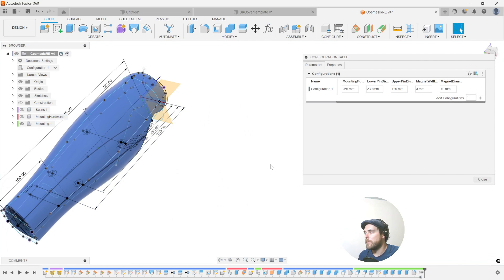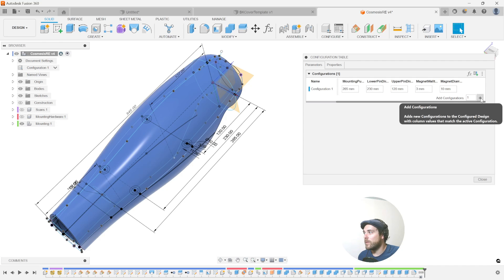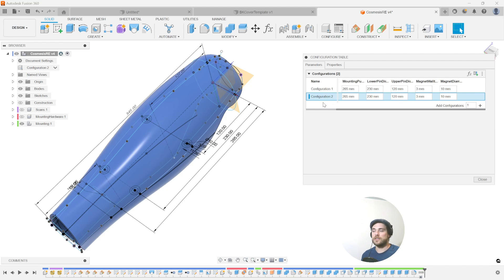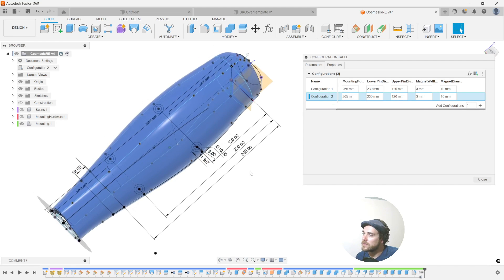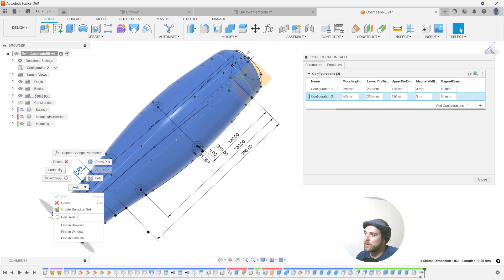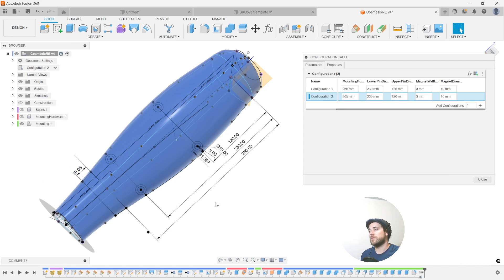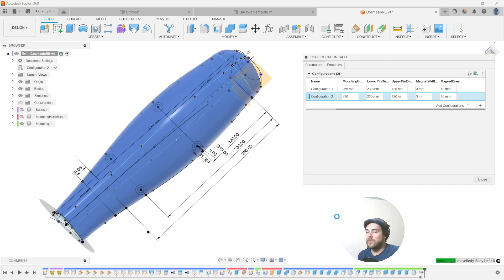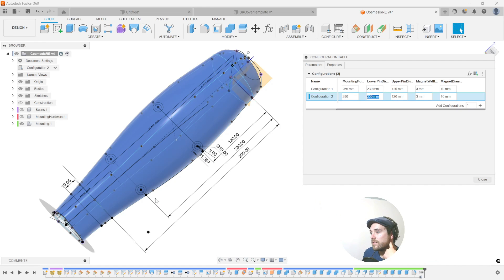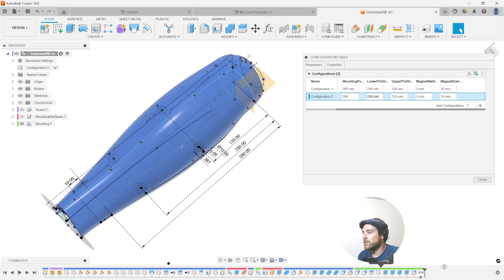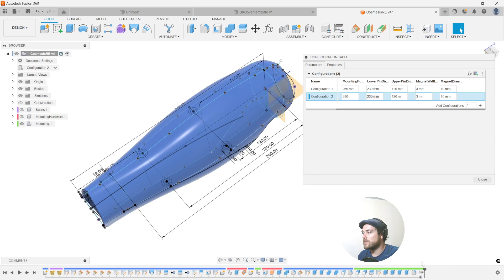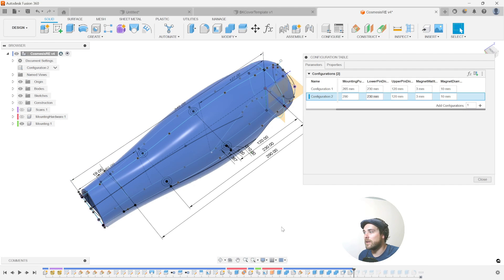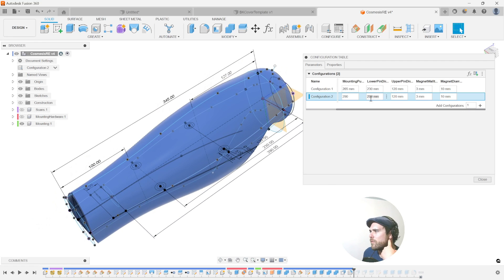So let's try some of these, and let's use some of these in our configurated window. So if I hit OK now, there is our first configuration. Let's go and add a new configuration and see if we can update some of these features for ourselves nice and easily. Which one is this? So this is a D31. So we might want to have that one too, just to determine the puck thickness as well. But let's give this a shot. So what happens if we make this a larger cover? So let's do like a 290. Now again, because I'm sitting at the very end of my timeline, this is going to take a while because it's updating everything in the timeline. So if you want, we can actually go back in time to sort of preview some of these designs. As long as all of our dimensions are in the build, we could shave off, like for example, this area here, which is generating the mounting.